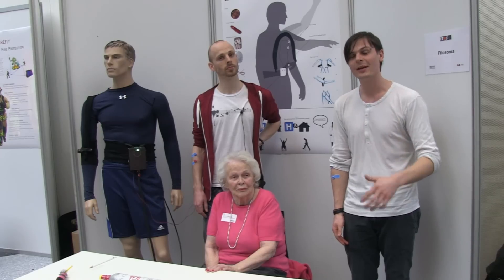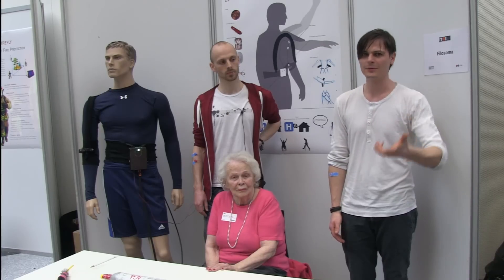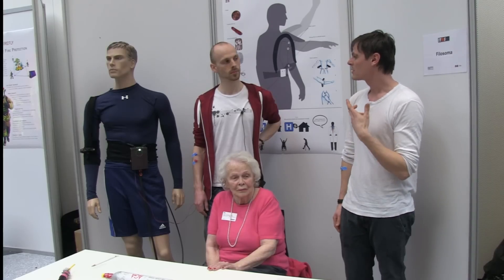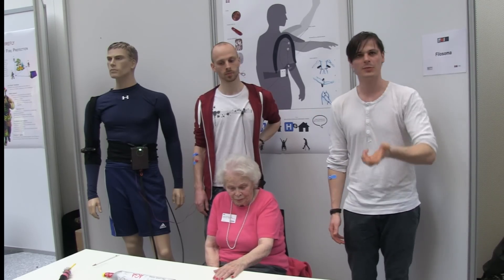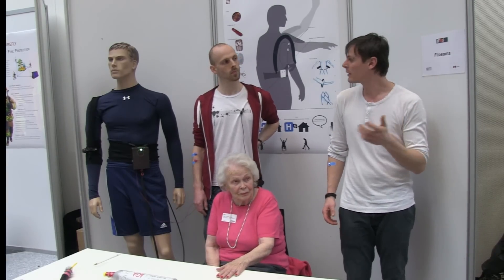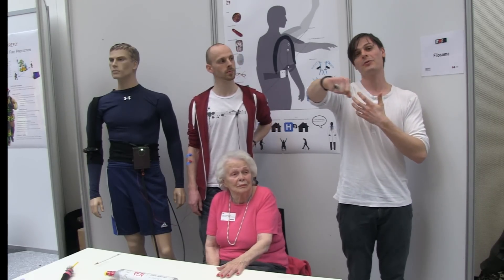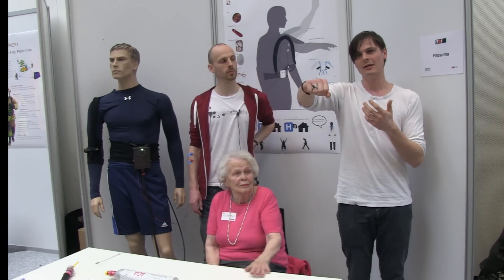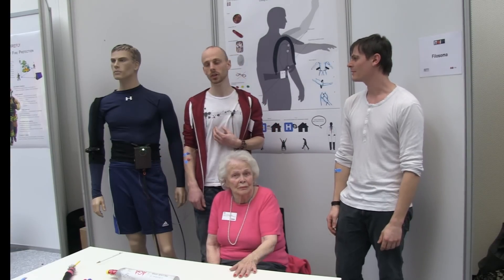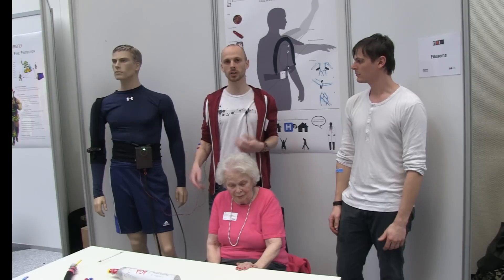The training hours they do have, they have to travel to the hospital every day to train, which is economically very expensive. This system — the idea is that it's not as precise, but it's very flexible. So if it helps actuate the arm in this direction, it doesn't hinder you from moving your arm in this direction. And also when it's deflated, you don't really feel it because it's completely soft.